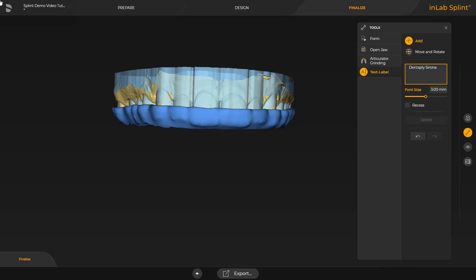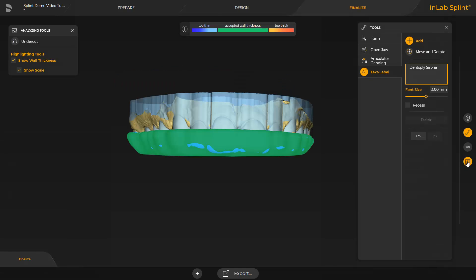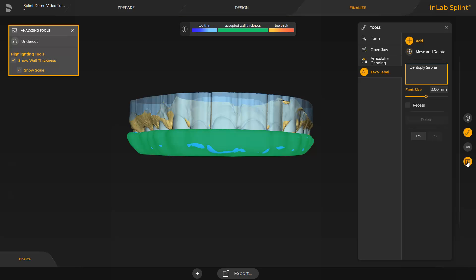Before exporting the splint, we use the Analyzing tools to check whether the design meets the minimum and maximum wall thickness. To do this, we select this option from the Page palette. At the upper edge of the screen, a color scale is located which indicates allocation and evaluation. Areas displayed in green are accepted, indicating they completely meet the material parameters. Areas displayed in blue are too thin and could easily break. Areas marked in orange or red are too thick and the print material is possibly not light cured properly during the print process, leaving liquid print resin on the restoration and potentially posing a health risk. The Analyzing tools point out certain risks at an early time, when they can still be corrected in the design stage. In our case, we proceed with the data export.